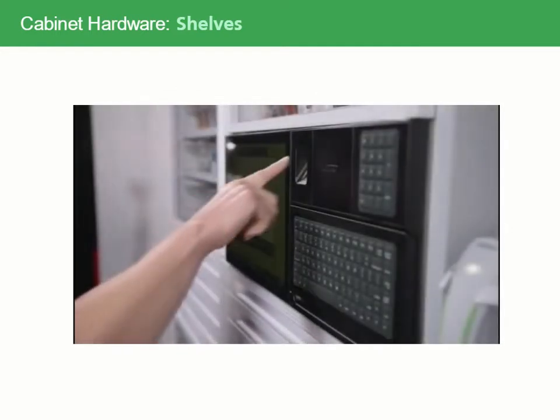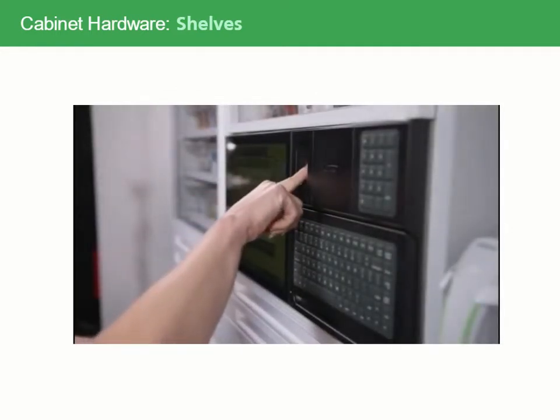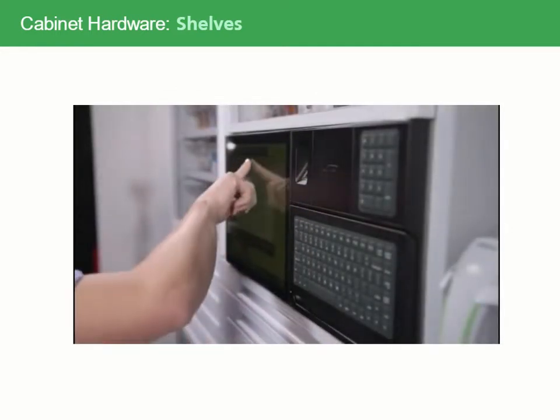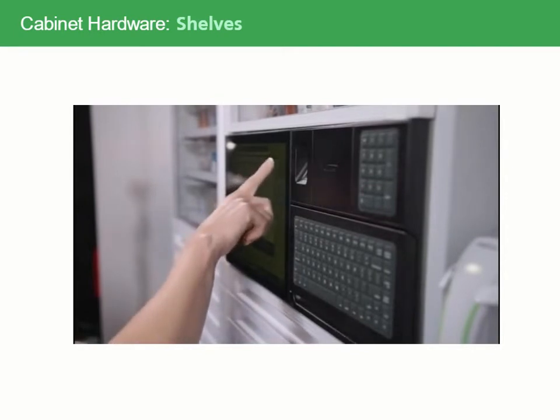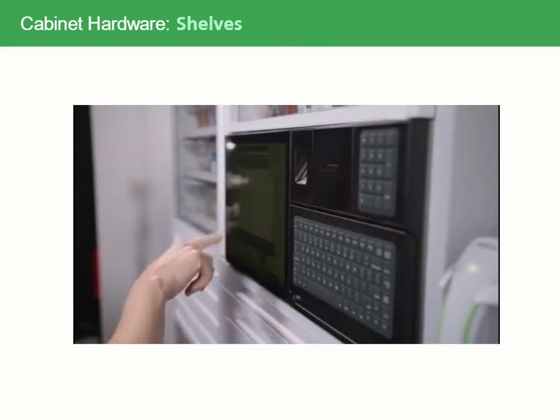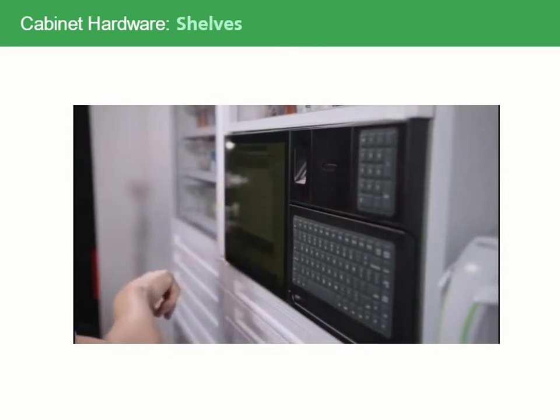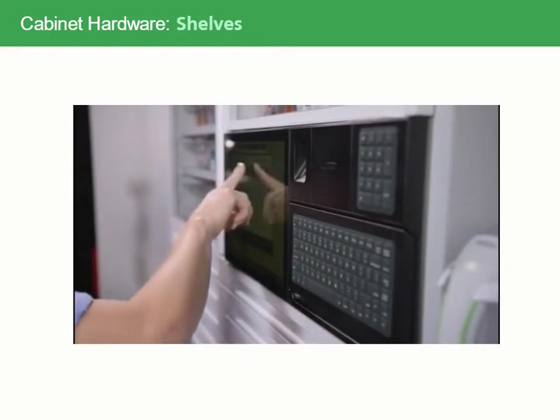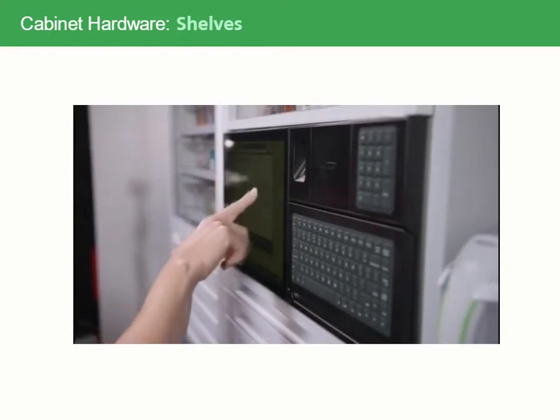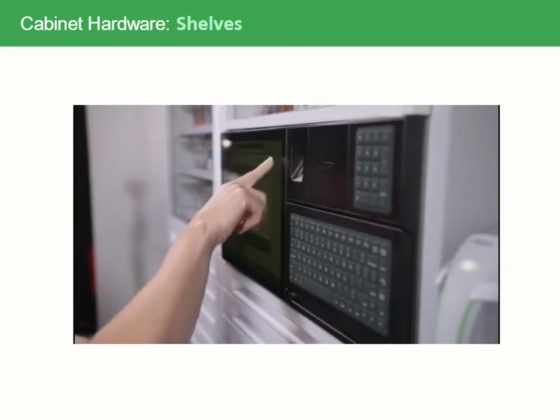After selecting an item on the screen, the guiding lights on the shelves will flash. Open the door and press the green button to select the item. Pressing the green button will reorder the medication, ensuring that the item is always available. Then remove the medication.